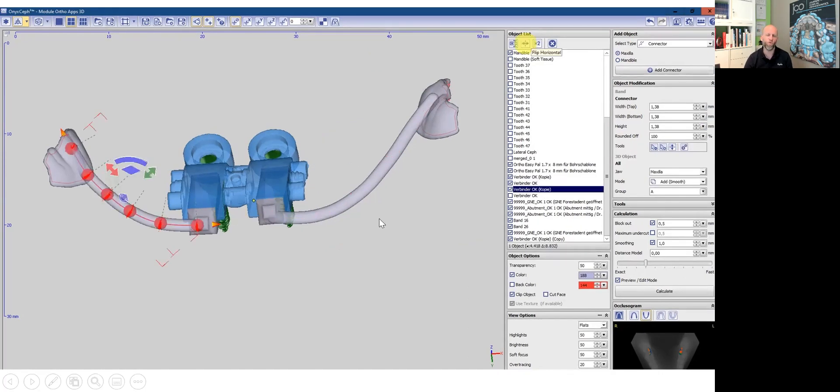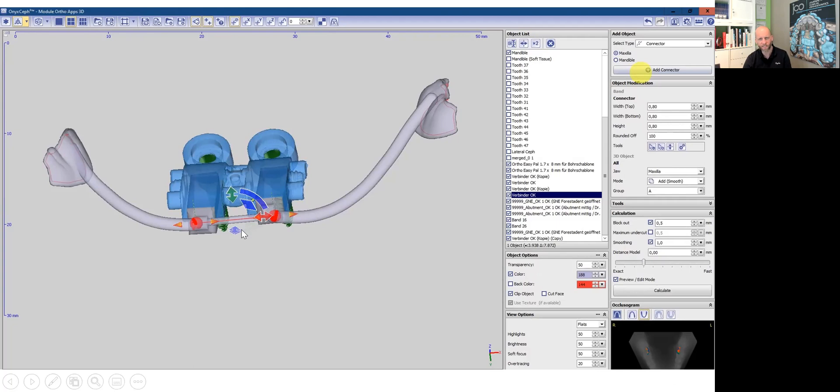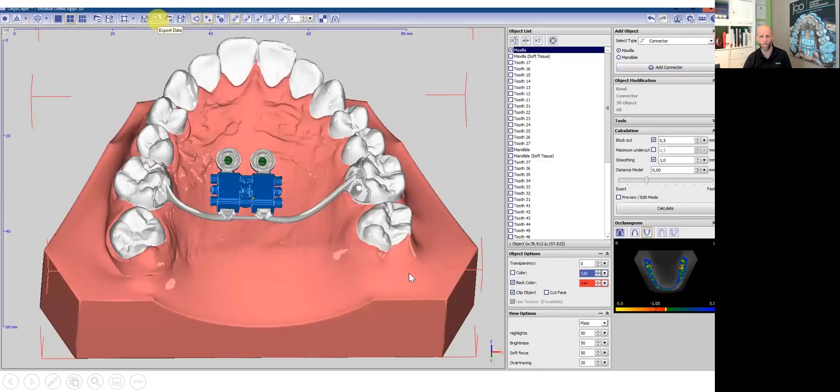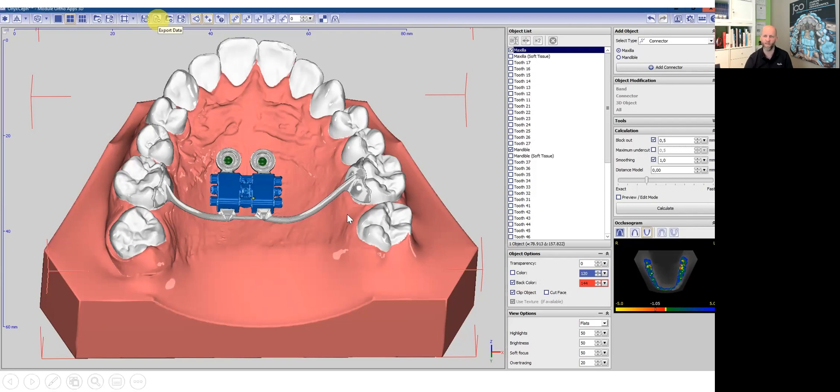If you do not like to print out a model to fit it, you can make a small auxiliary. It's called a welding or tack welding bar. It's really thin and holds the left and the right side together. So you could later on, after metal printing, tack weld your Hyrax screw quite easily. So this is the basic design. I selected the abutments, the Hyrax screw, the molar pads. And in between the different parts, I connected all these with connectors.